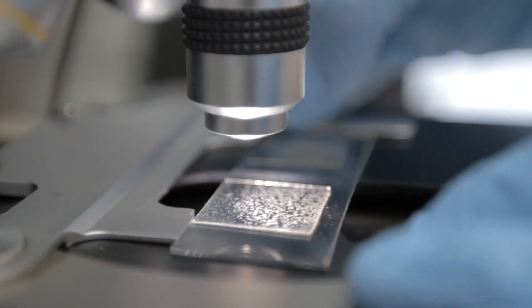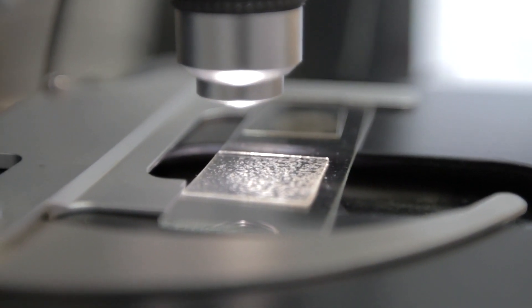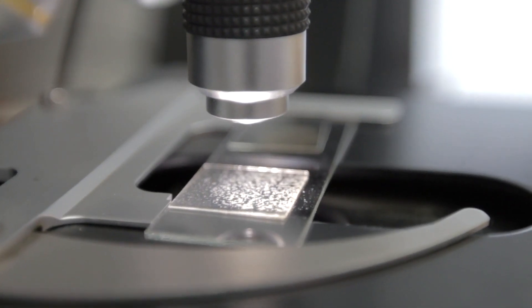Conventional pathology, the whole process is very laborious, it's very slow, it's all done through a microscope that you physically look through.